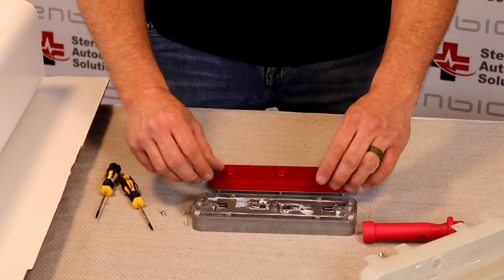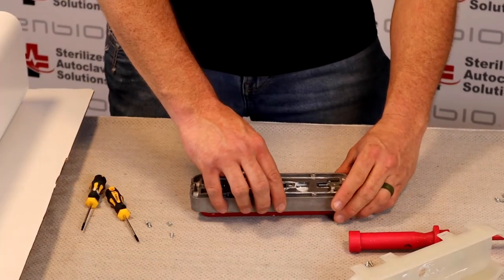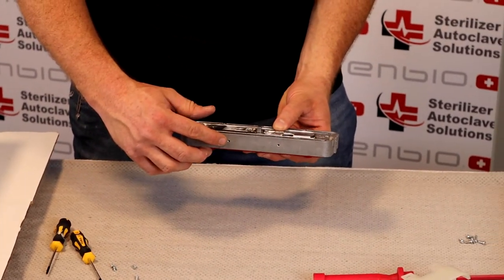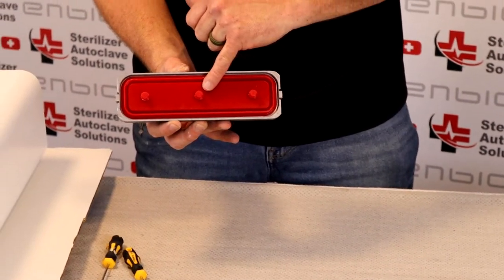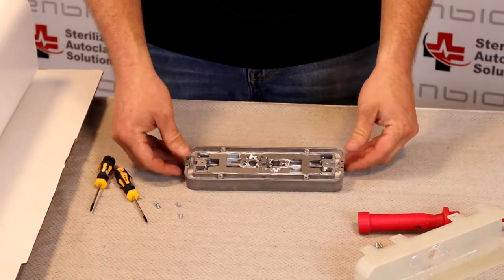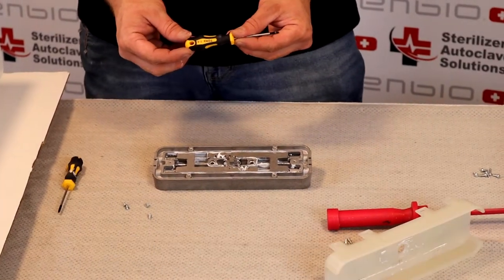While I am installing this, I'll put it back into place. Notice where the screw holes are in comparison to where the solid part of the nipples are sticking out. After ensuring that is correct, I am going to install these four screws using the Torx T8 again.